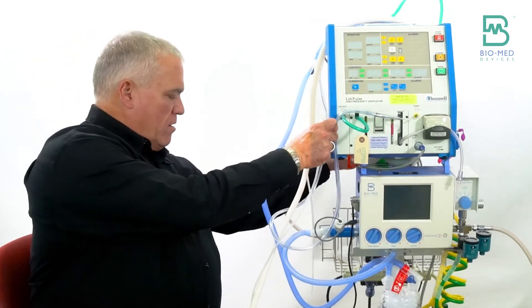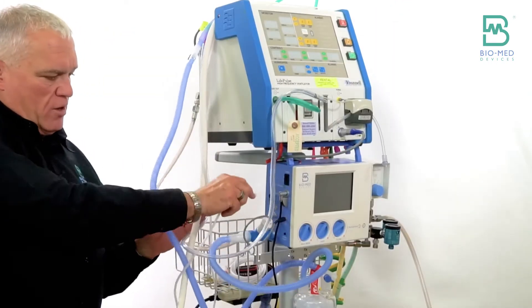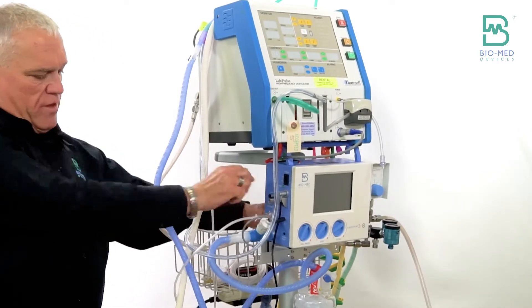The pressure line goes to this larger fitting and you just push it on there.